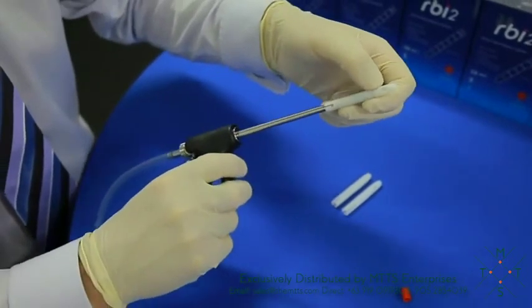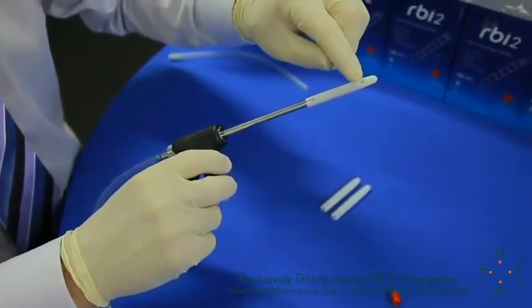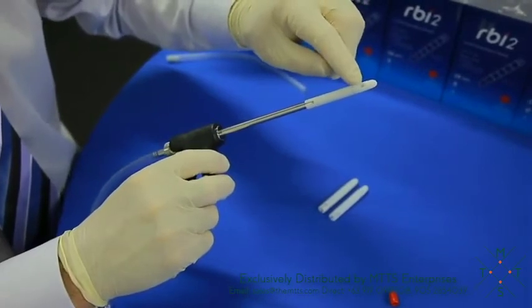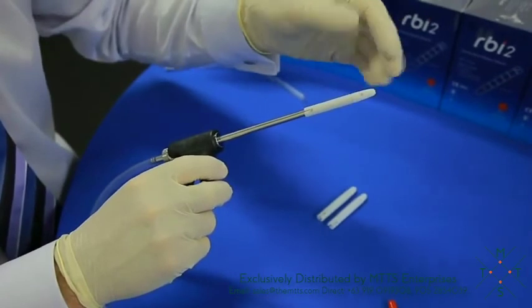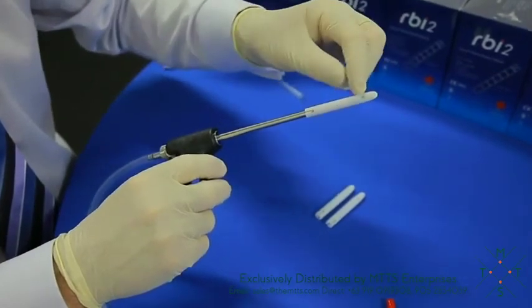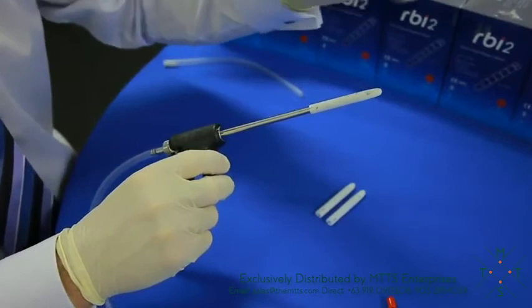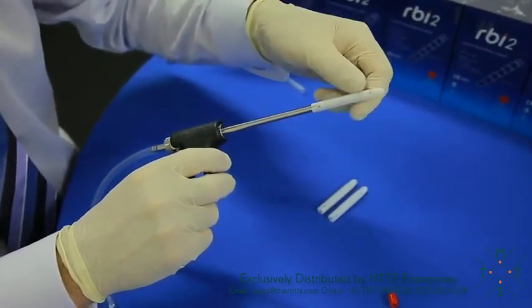It's important before we take the capsule off that we make sure that you can't see any part of the blade. This is very important because sometimes if you push and you haven't pushed through that first part of resistance, the blade hasn't completed its cycle and gone right to the back and helped release the specimen.